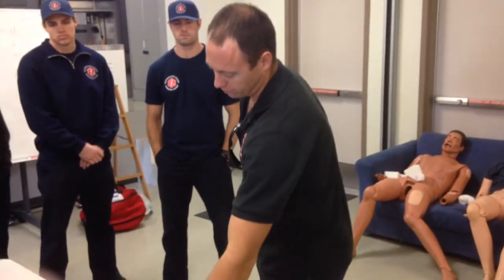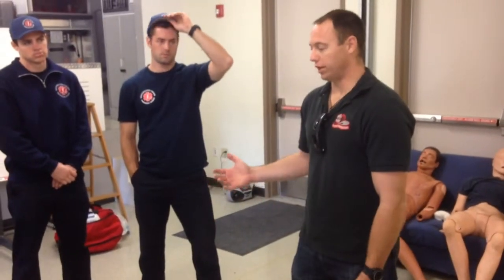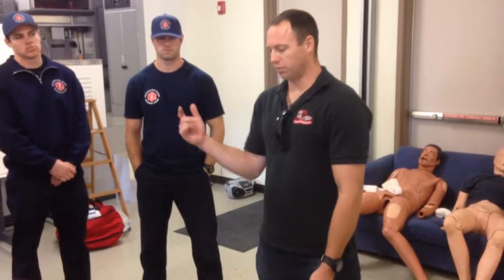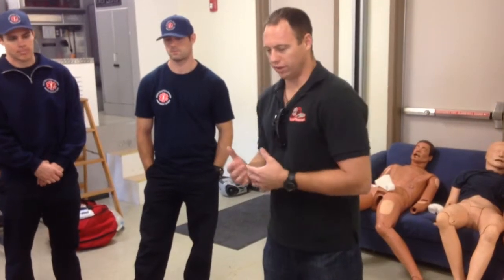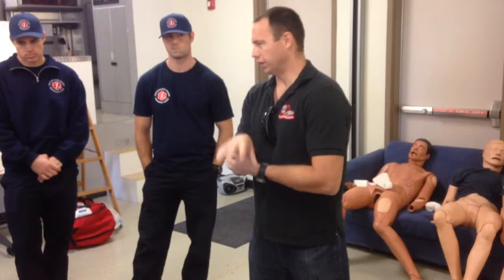So keep that in mind. Start with 5, move up. In the field, if my assessment has determined that this patient is a CHF patient, I'm going to start at 10. And I'm just going to go straight to the max because I'm trying to force that fluid out, and I'm very aggressive with these patients. So I'm going to let you guys get hands-on with this and see what adapters are necessary. I'm sure you guys already did it. But get hands-on with it.